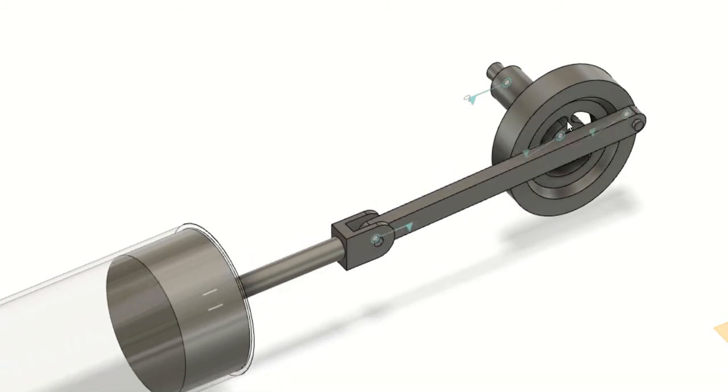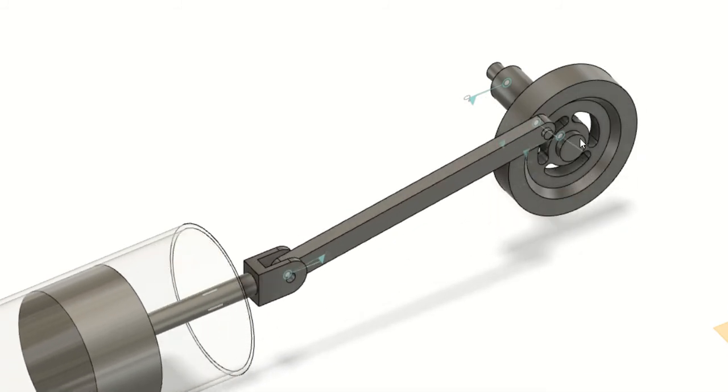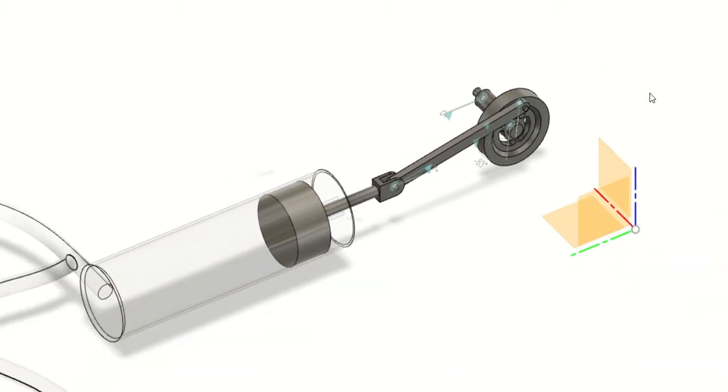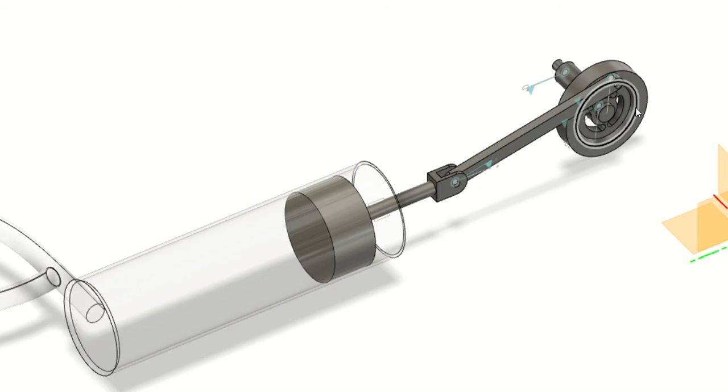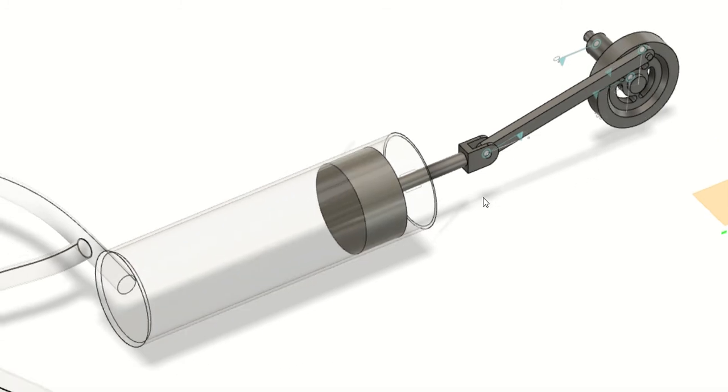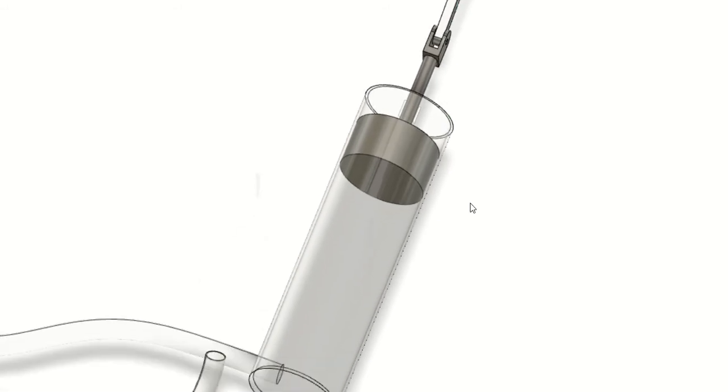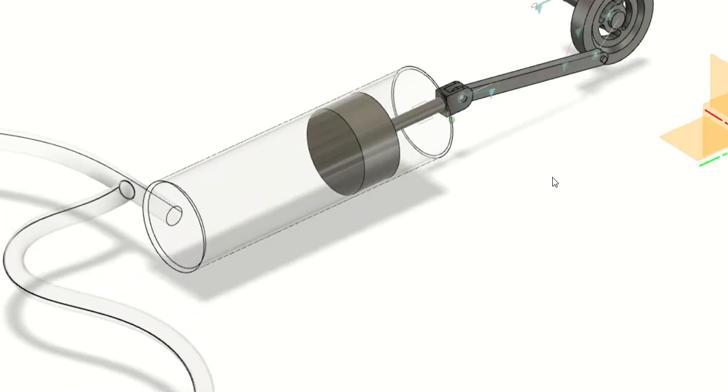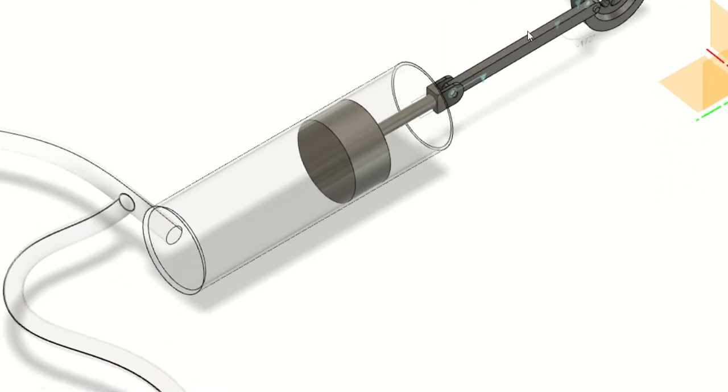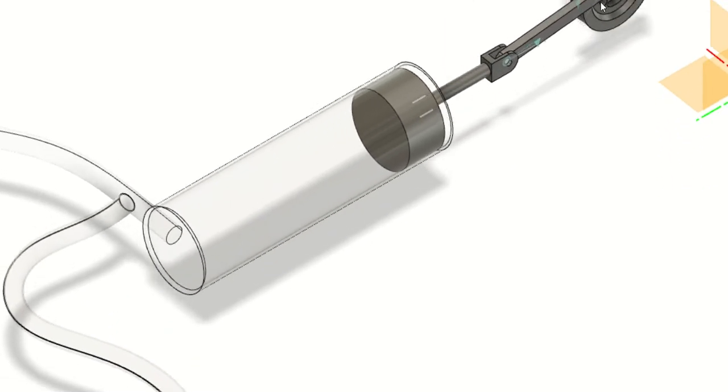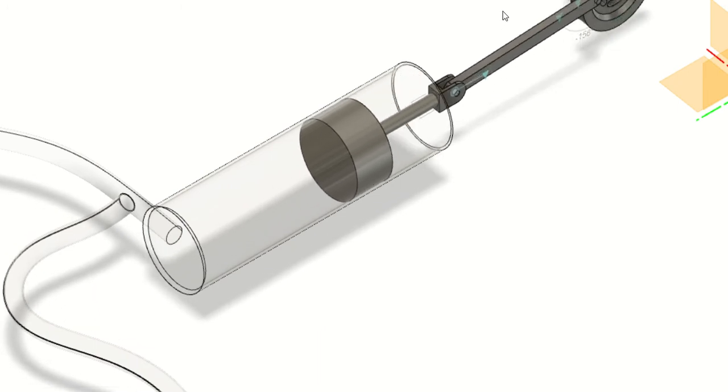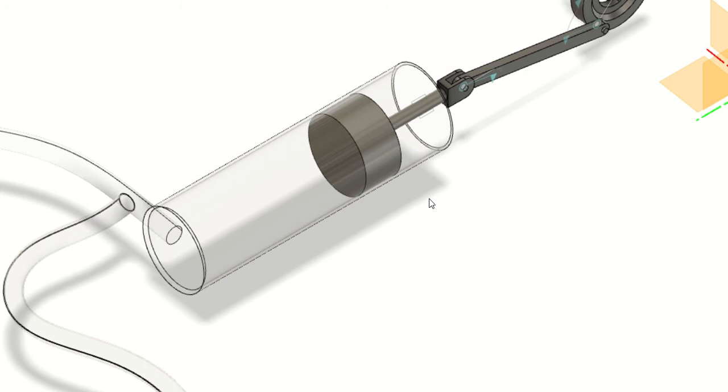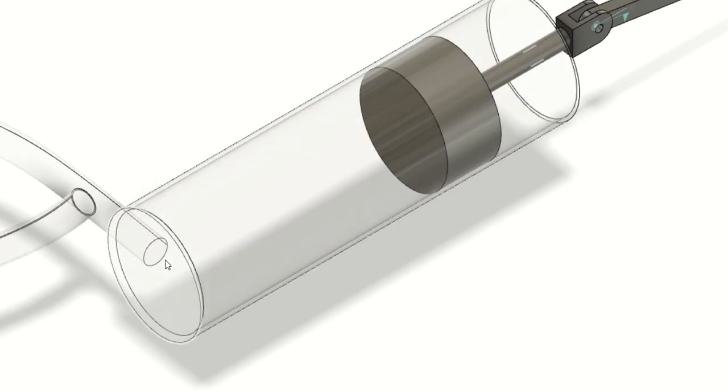There are some problems which I haven't been able to solve, and if anyone has some input I would be very happy to receive them. One problem is the pressure this piston will produce. Basically, whatever displacement this thing is going to make is going to make a tidal volume of approximately 500 ml. But the problem is, with 12 rotations per minute, this assembly is generating just six liters per minute. But as I was reading the ventilator guidelines, the flow rate should be 60 liters per minute.